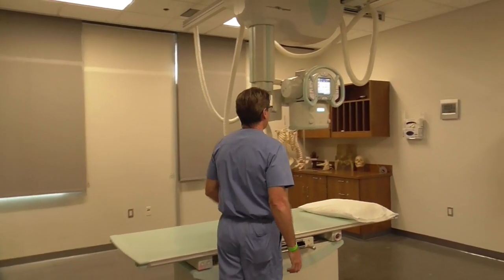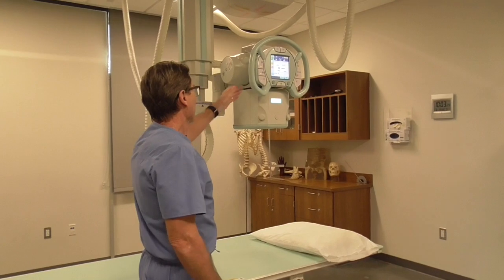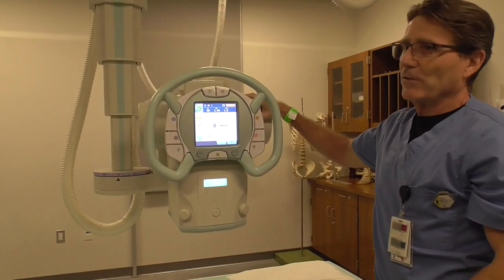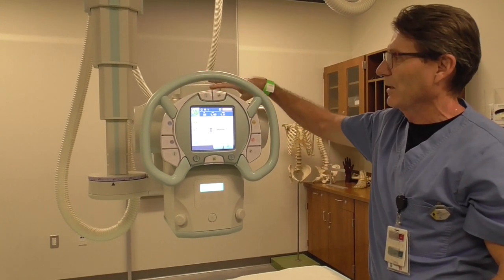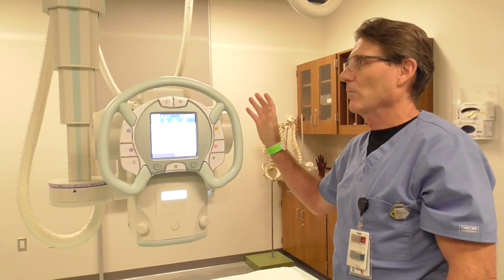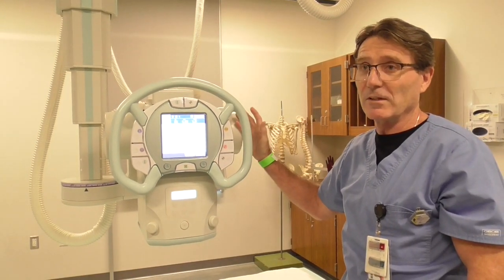I'd like to bring you in and show you what we refer to as the x-ray tube. This tube is where x-radiation is produced. It does move. The actual interaction where radiation is produced takes place in this tube. There is no radioactive material in this tube, but radiation is produced through an interaction of electrons slamming into what we refer to as the anode, which we'll go into more detail on in other classes.